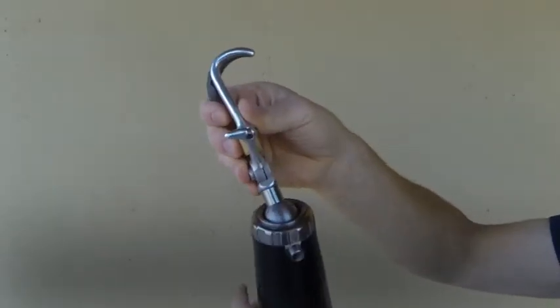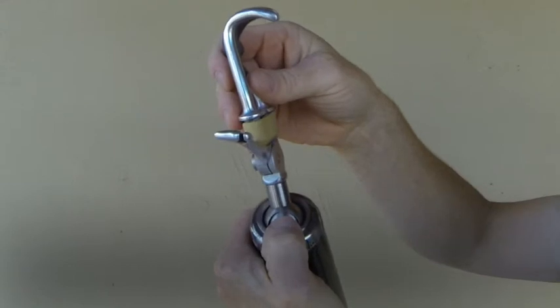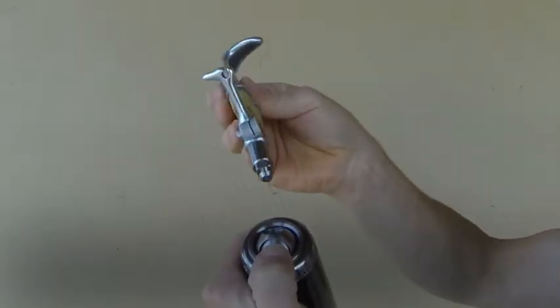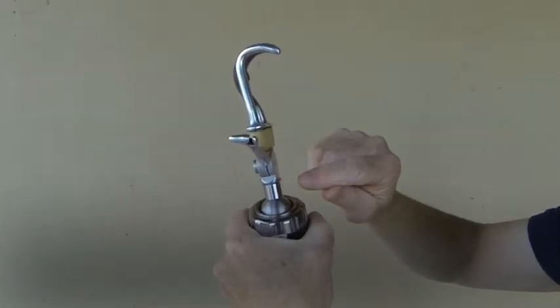It's also a quick disconnect. On the ball there's another button, and if you press that button, the hook can be taken out and put back in.